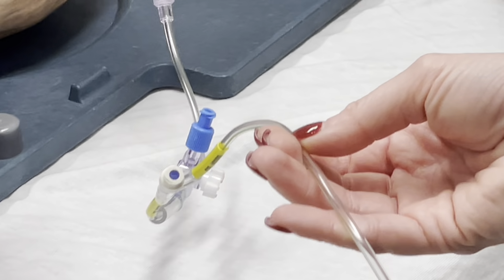So the next thing too is that in this kit with your EVD, it's going to come with your level. Sometimes the level will be attached to the pole already. Sometimes it will come in the bag. Sometimes you will have to look for one, but it is important to have a level. If you're dealing with a subdural or an epidural drain, they don't need to be that level, they don't need to be transduced. Typically you can take the levels. If for some reason they do have level orders, you know, keep your level, follow instructions. But typically keeping your patient level is something for the EVD.